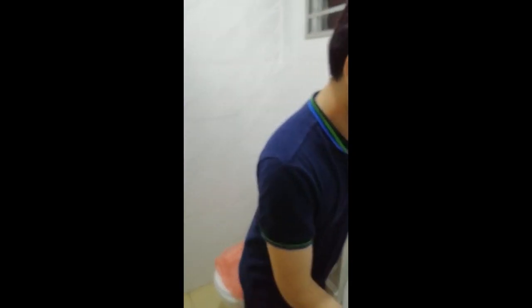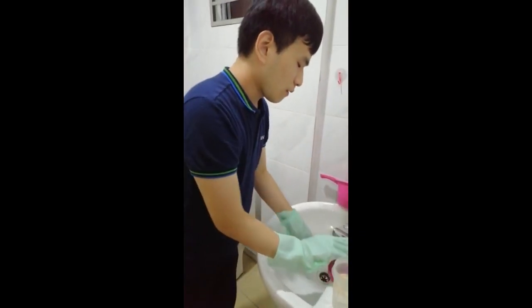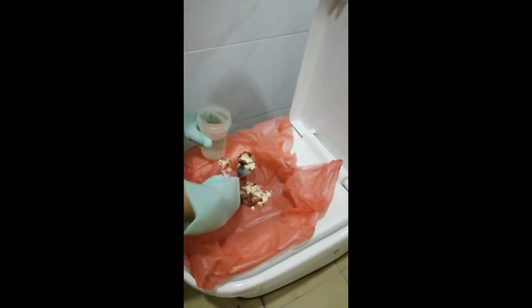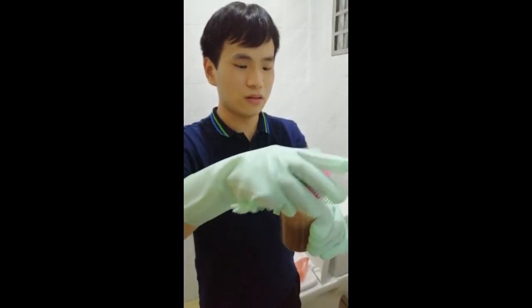On the lid there is a spoon. With your disposable gloves, you scoop some of the stool and try your best not to touch the edges — let it free-fall into the container without touching anything. Once it reaches the line you stop, then close the lid tightly.